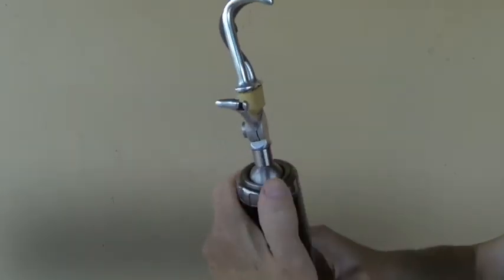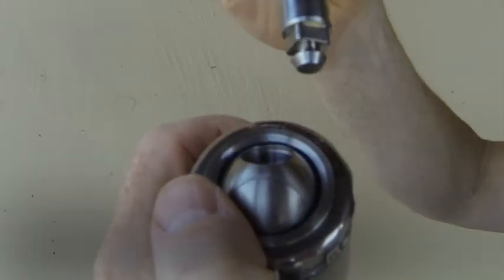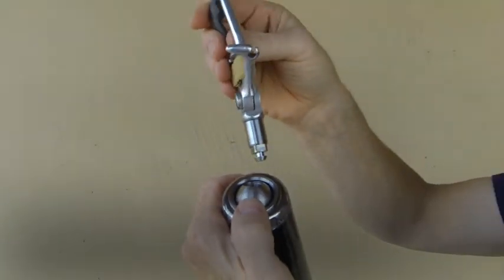You would need to have quick disconnect adapters like the one on the hook on all the other items you might want to put into the prosthesis.